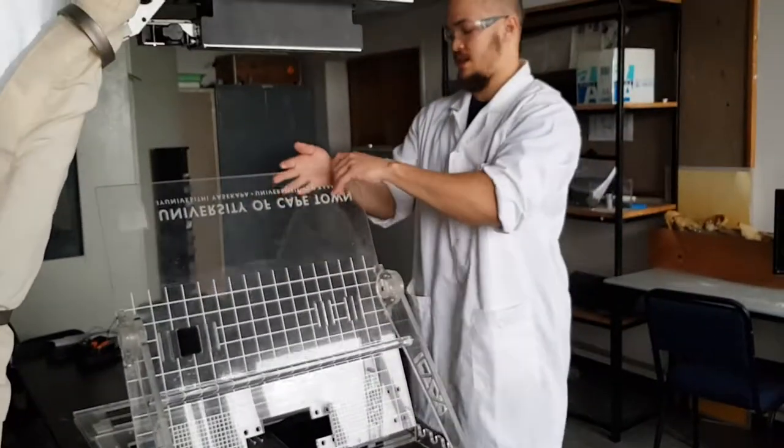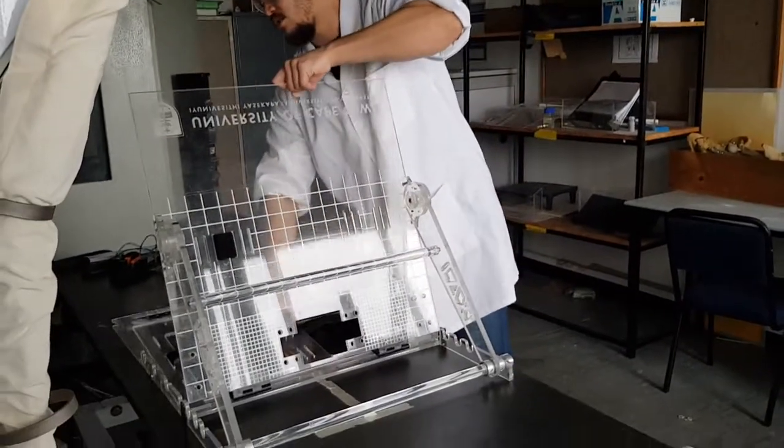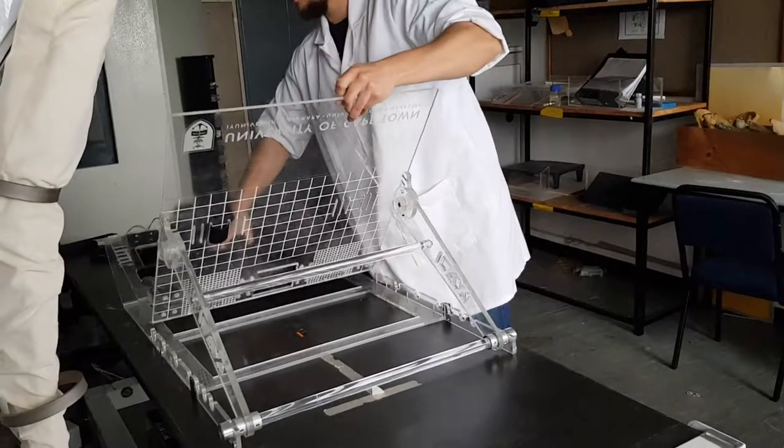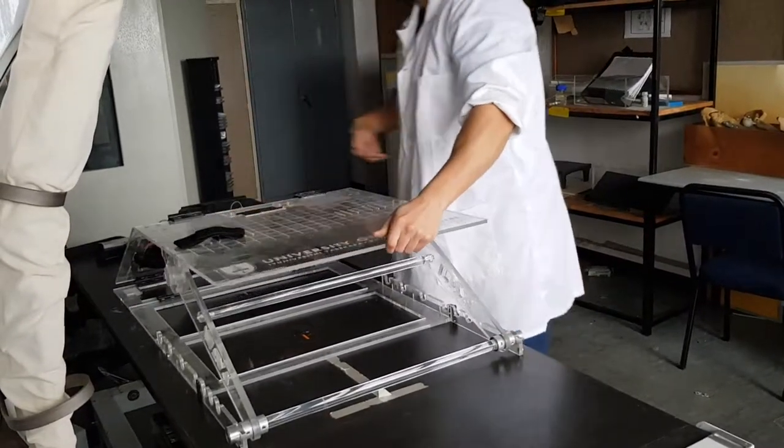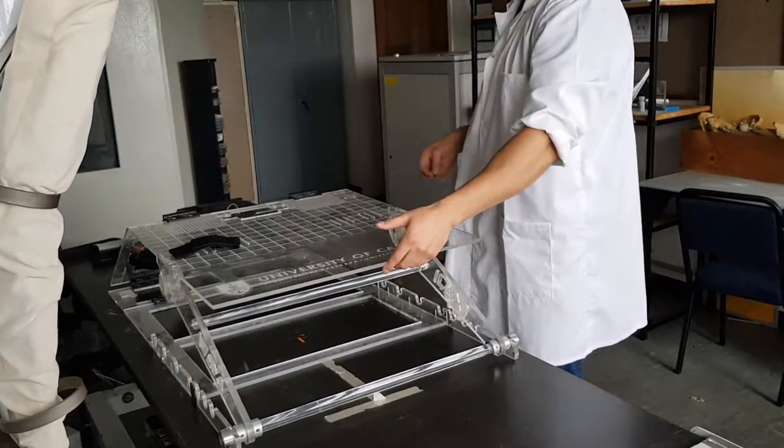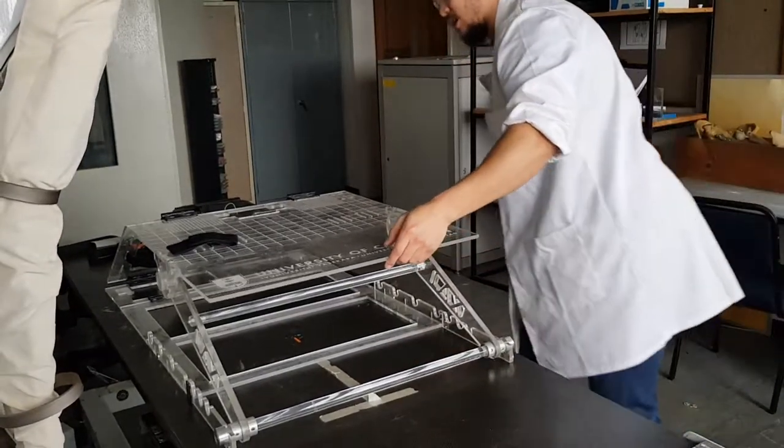Press them down to secure it. From there, you take your middle support panel, shift it back and then make sure that your lower leg support panel is parallel to the ground.